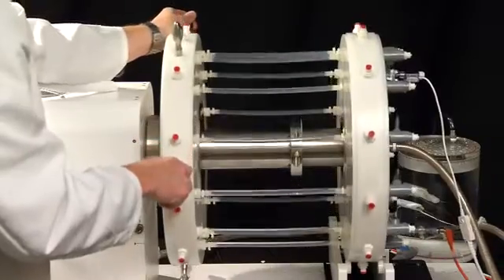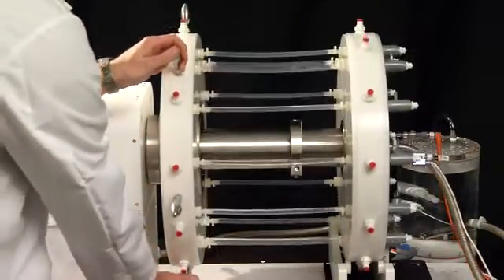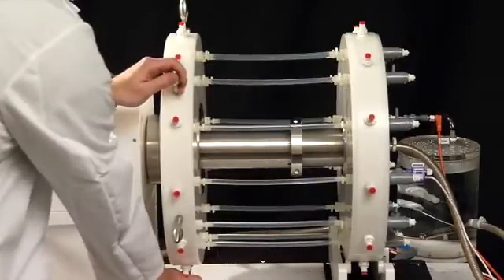Unlike competitive testers, the manifold can be rotated freely 360 degrees without cables or tubing getting wrapped up with the system.